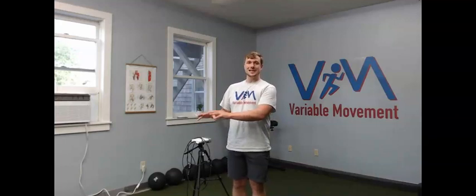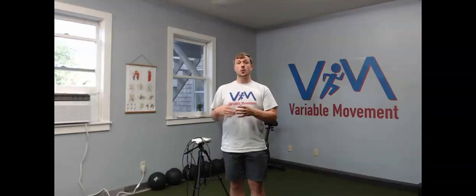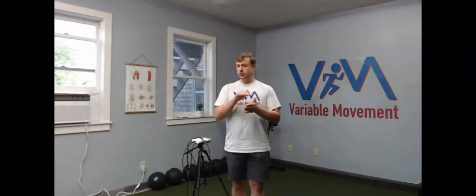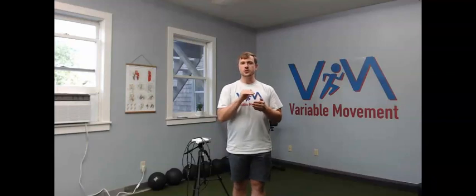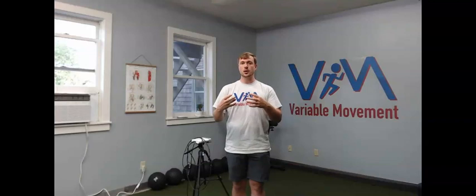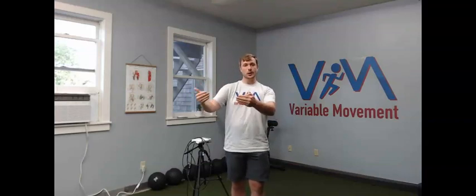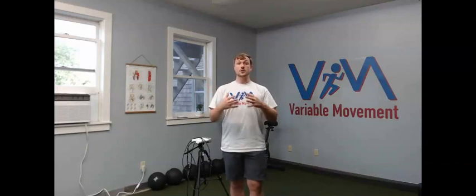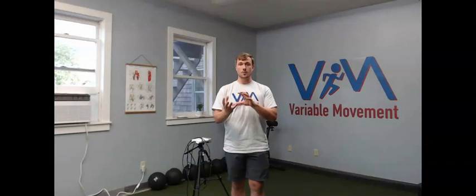So what this is, it's a LiDAR camera. And so what LiDAR is, it's an infrared photon that's being pulsed out of the camera at about 1,000 bursts per second. And so what that's doing is it's capturing the amount of time that that photon is traveling, as well as how quickly it's reflecting back to the camera. And so what that does is it gives us a 3D image of the body during functional movements.